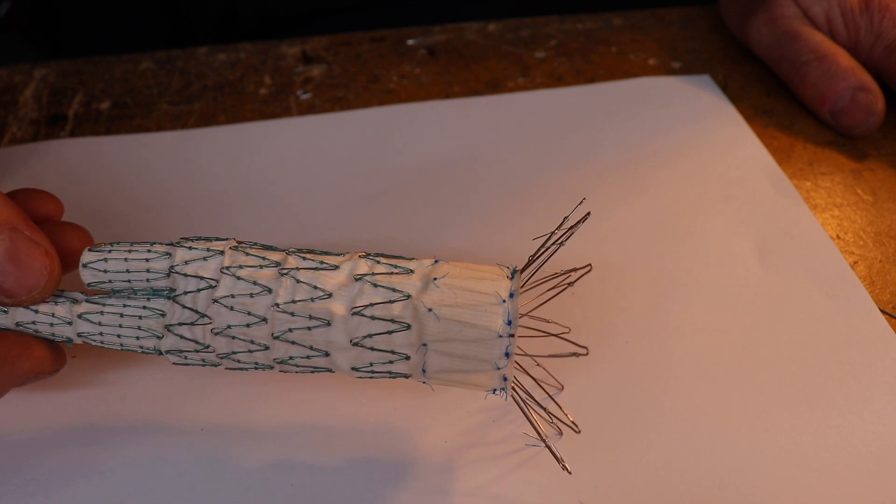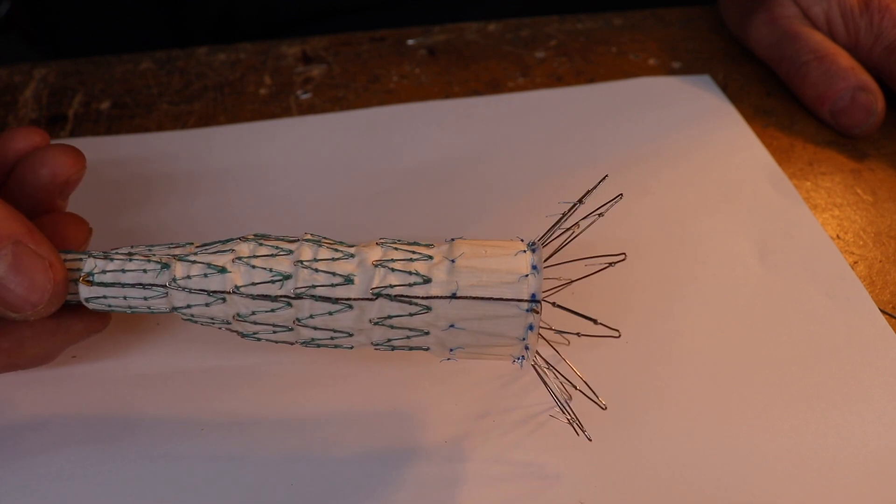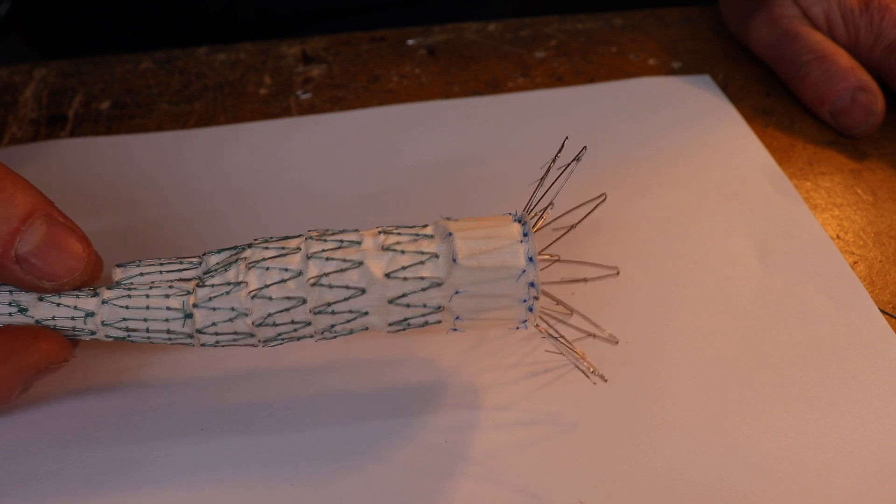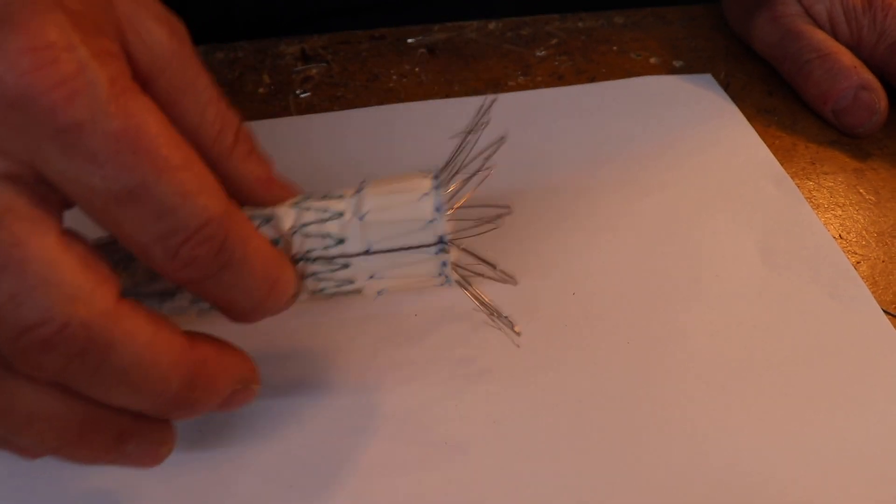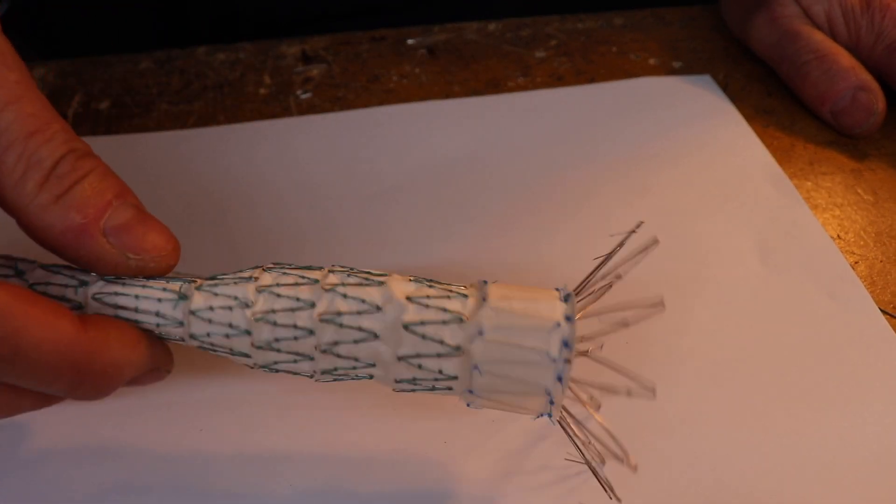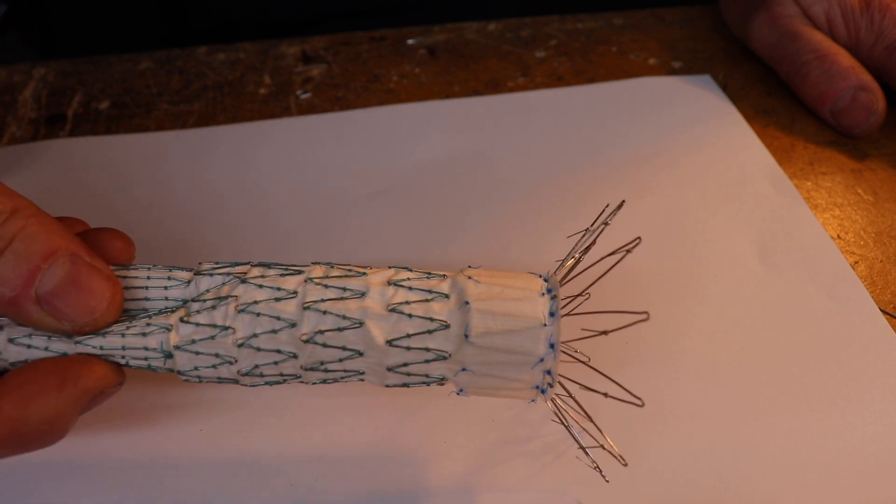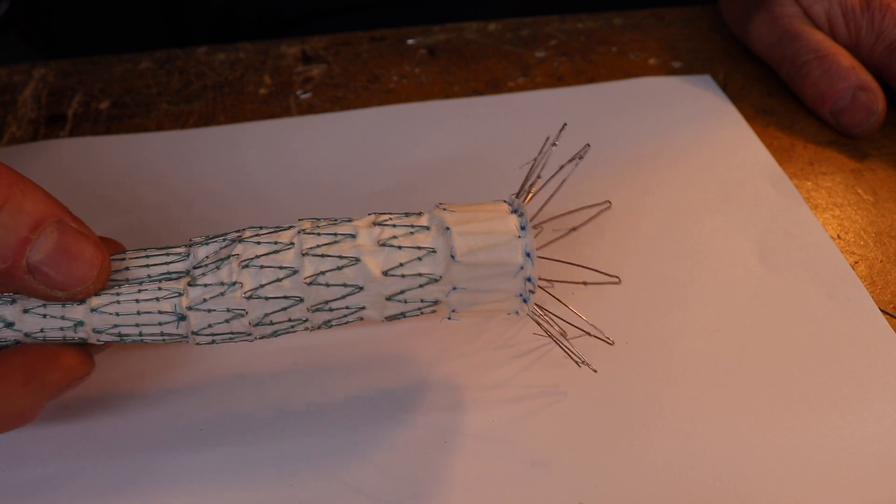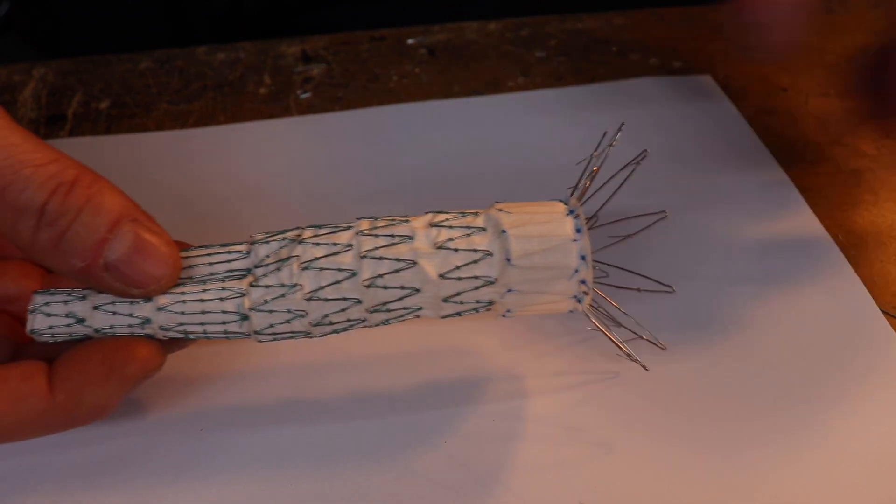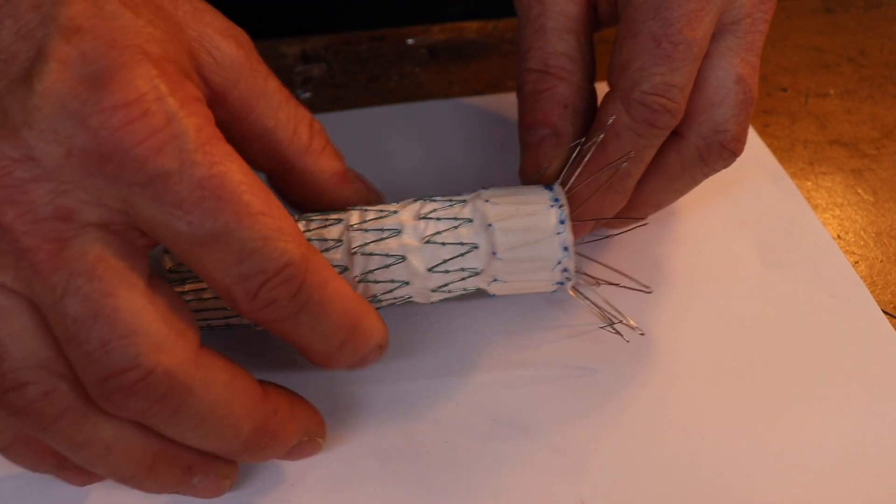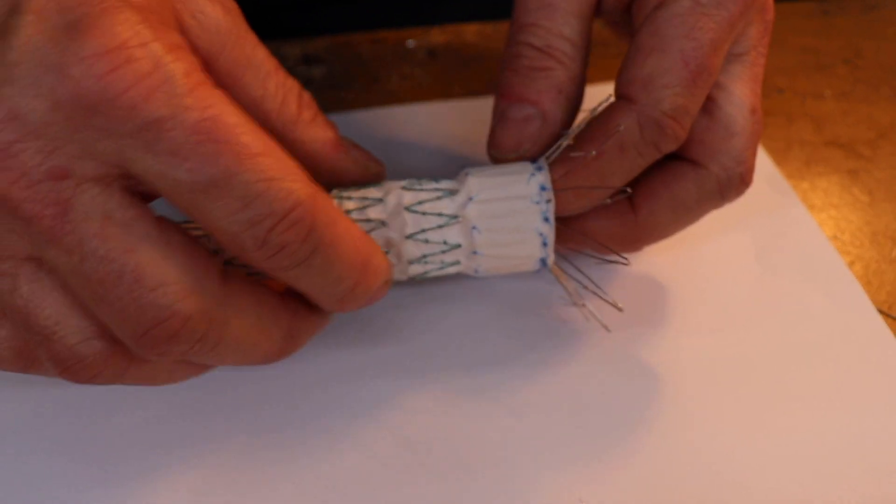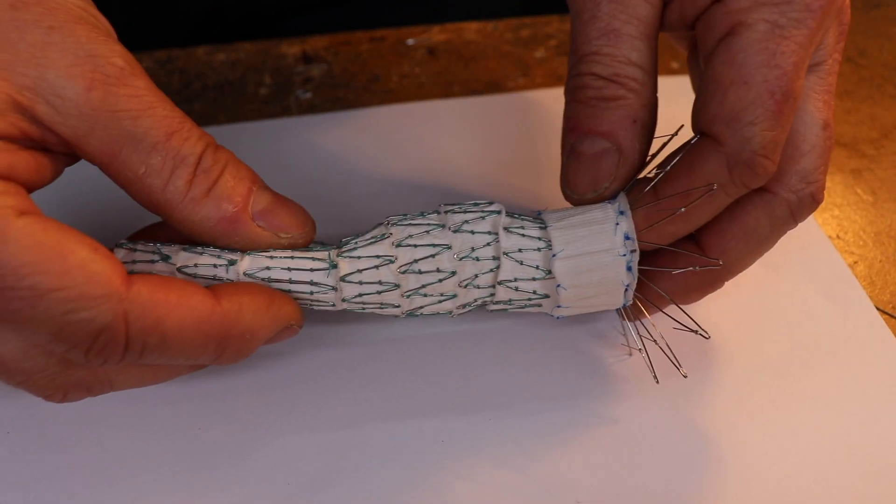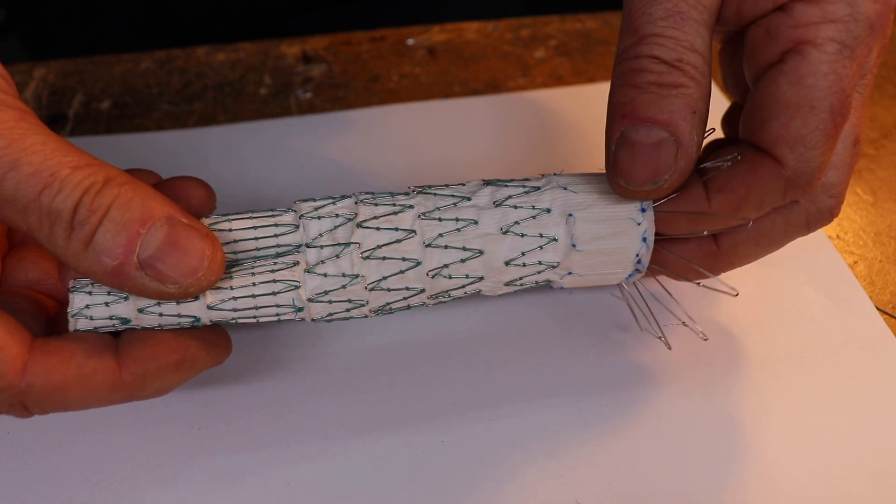As I said, they do have the drawbacks I mentioned originally. You can just imagine with the blood pumping away, this is a man-made device, it's quite rigid. These struts would be prone to failure. Certainly in the earlier devices that was a problem. It can still happen with these newer ones, but the way this is designed there's very little. These things are designed to flex and move. That's how it would be in the human body.